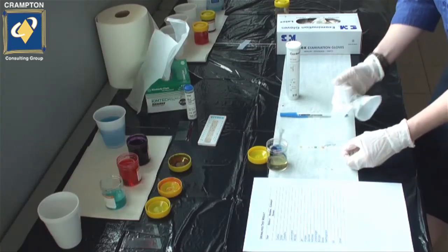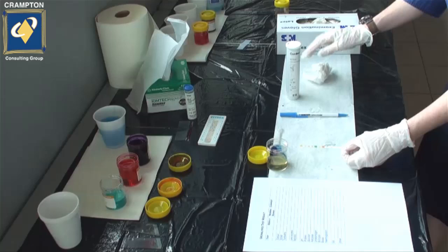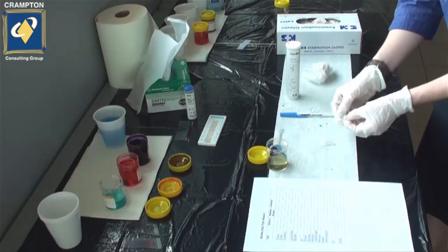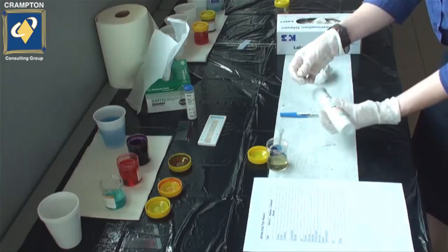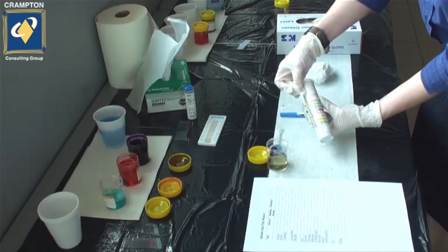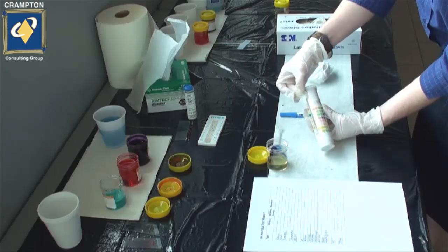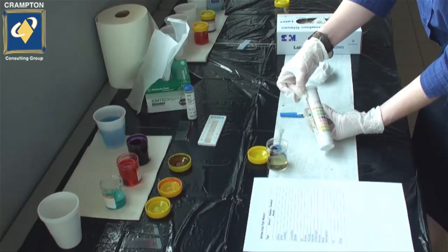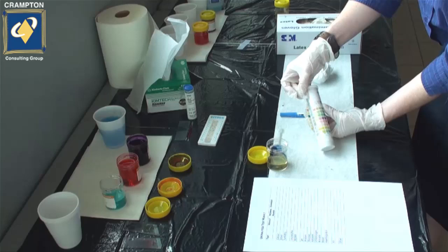Ensure that you check on the packaging which way you are to hold the strip to read the results. Then document the results that you get from the test on your result sheet.